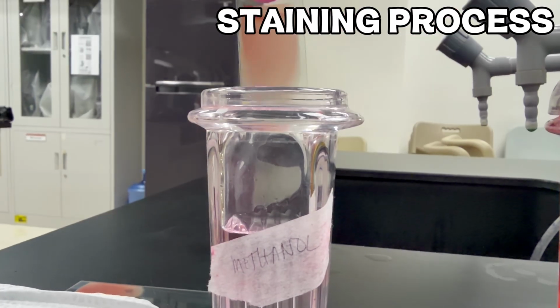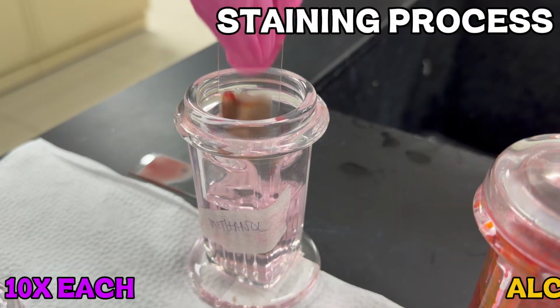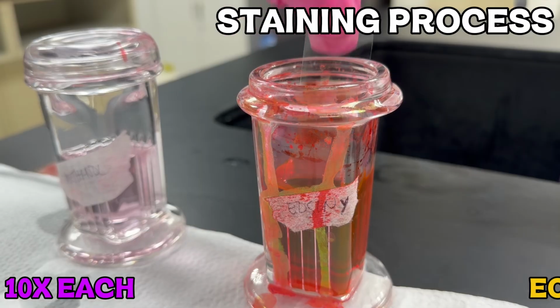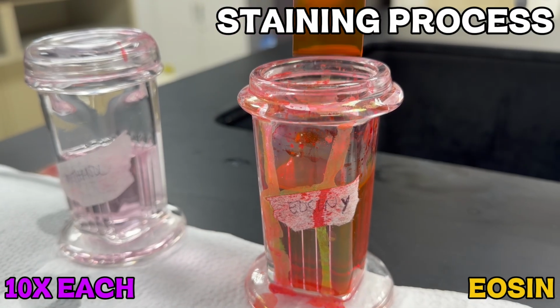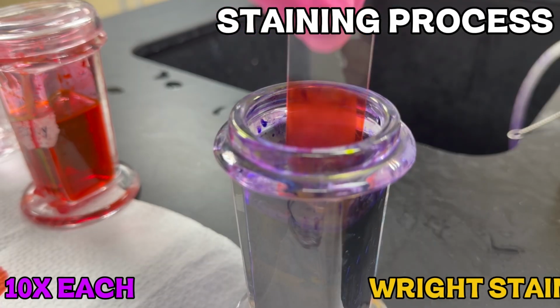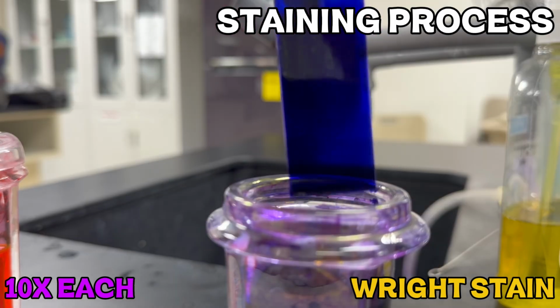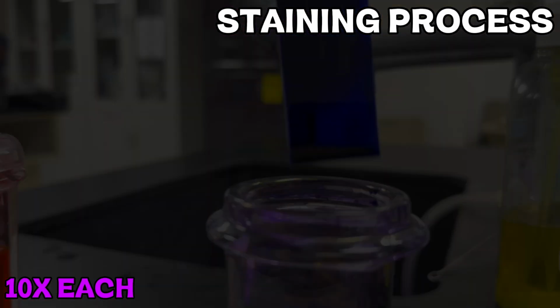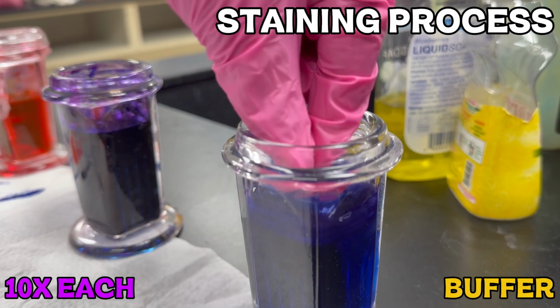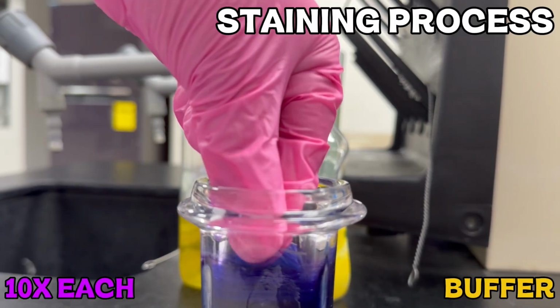Dip the slide into each solution of Wright stain set 10 times in slow, steady dips. Then proceed to buffer. This is usually dipped or flooded depending on your lab instruction.